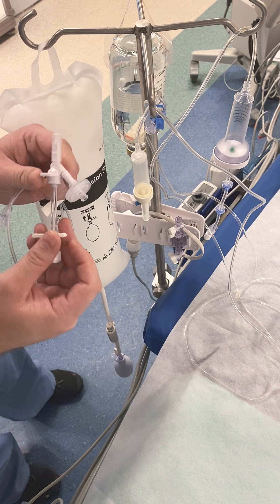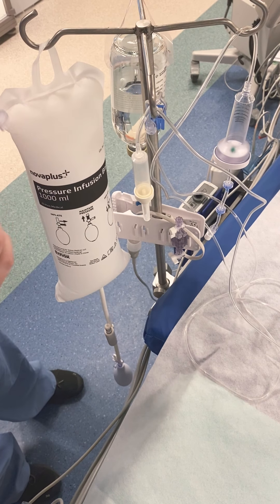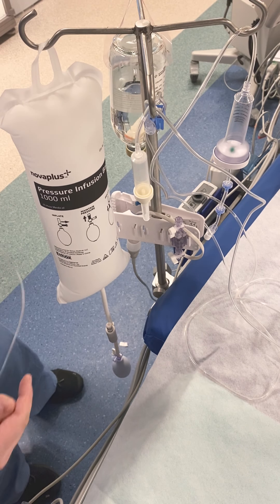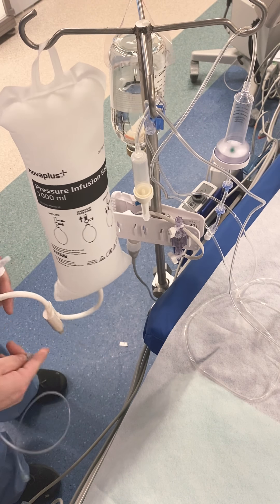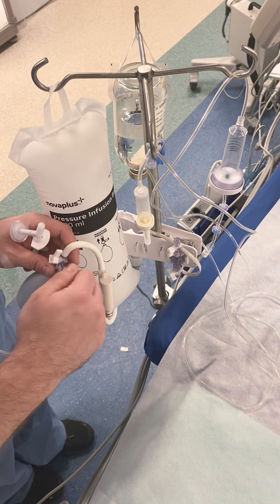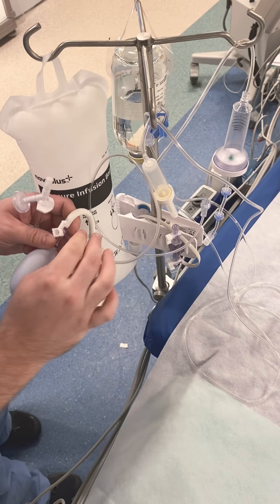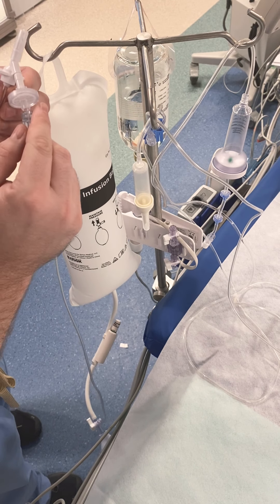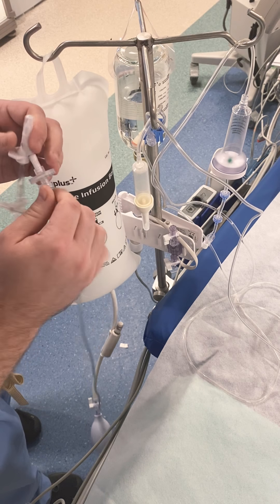So this spike — this is the convenience kit. You have your saline already in a pressure bag with pressure on it, and it has a side port off of the bag. We'll make that connection, and the other one will go to this little disc side that allows you to pressurize the bottle of contrast.